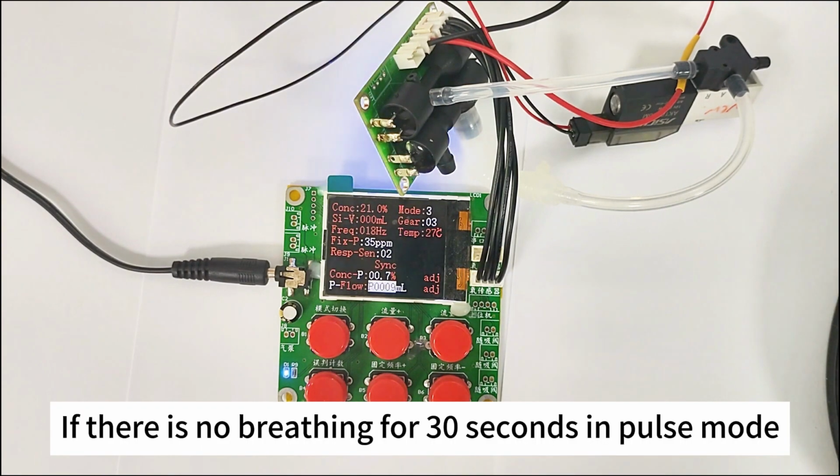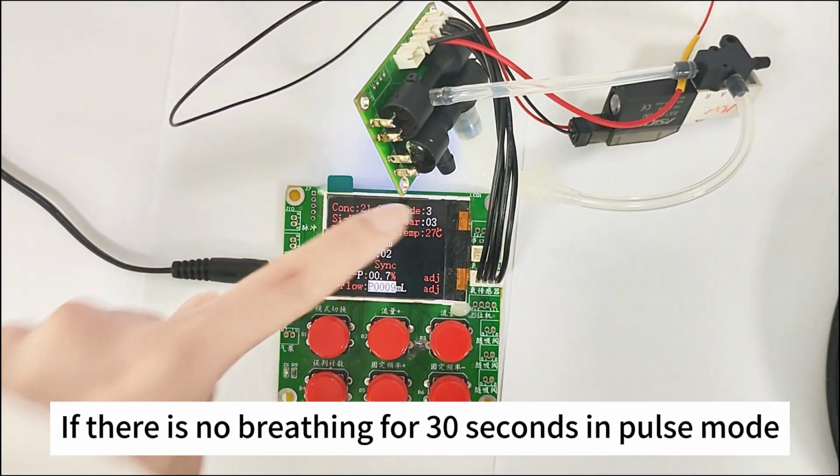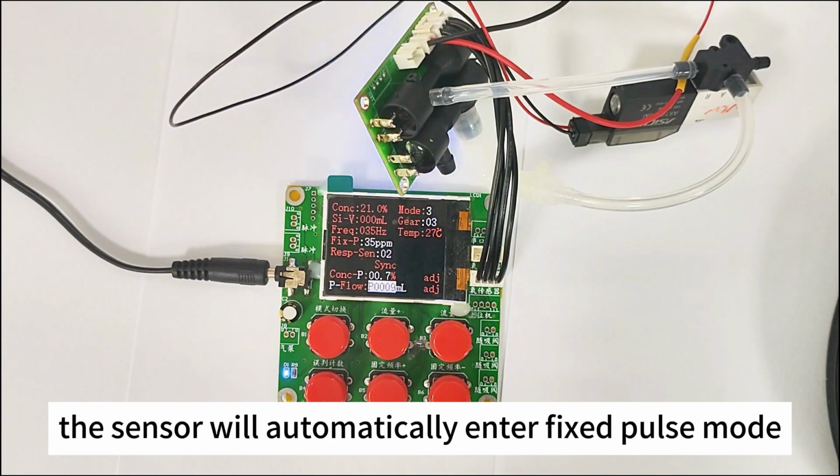If there is no breathing for 30 seconds in pulse mode, the sensor will automatically enter fixed pulse mode.